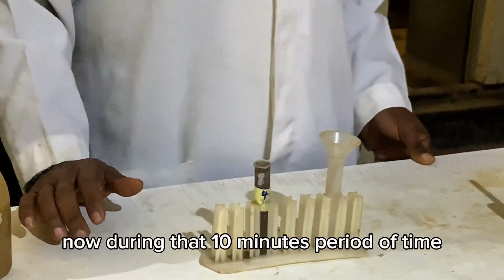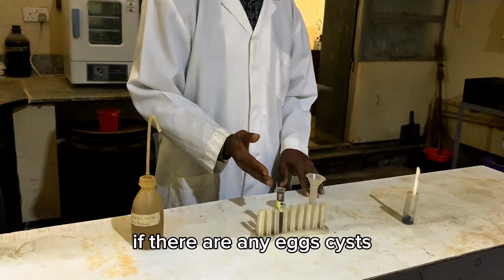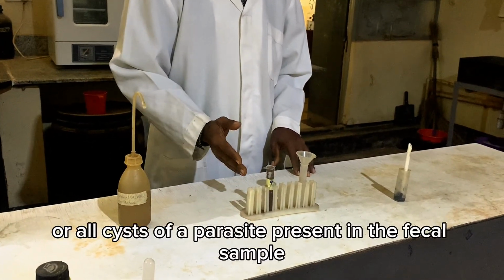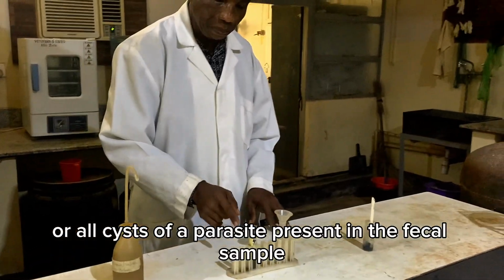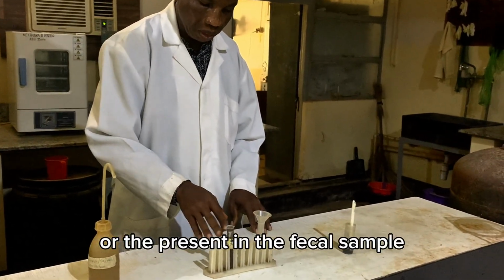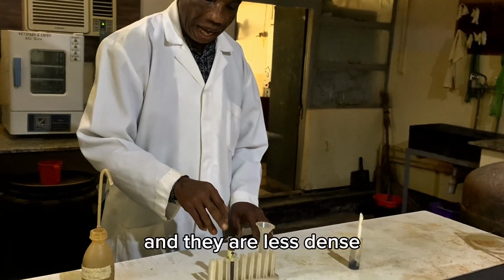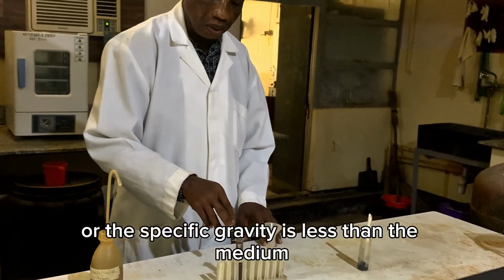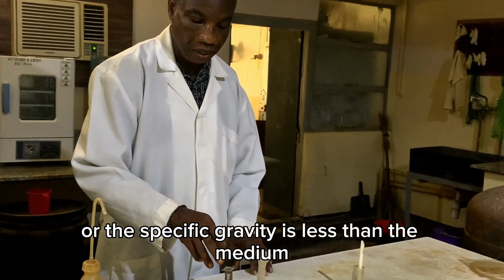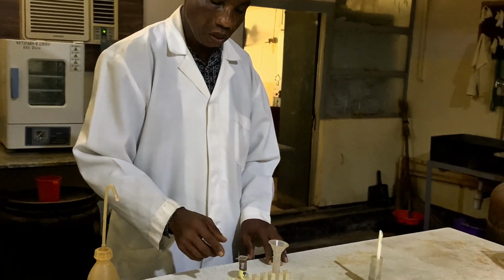Now during that 10 minute period of time, if there are any eggs, cysts or oocysts of parasites present in the fecal sample, and they are less dense, or their specific gravity is less than the medium, they are forced to come to the surface, they float.